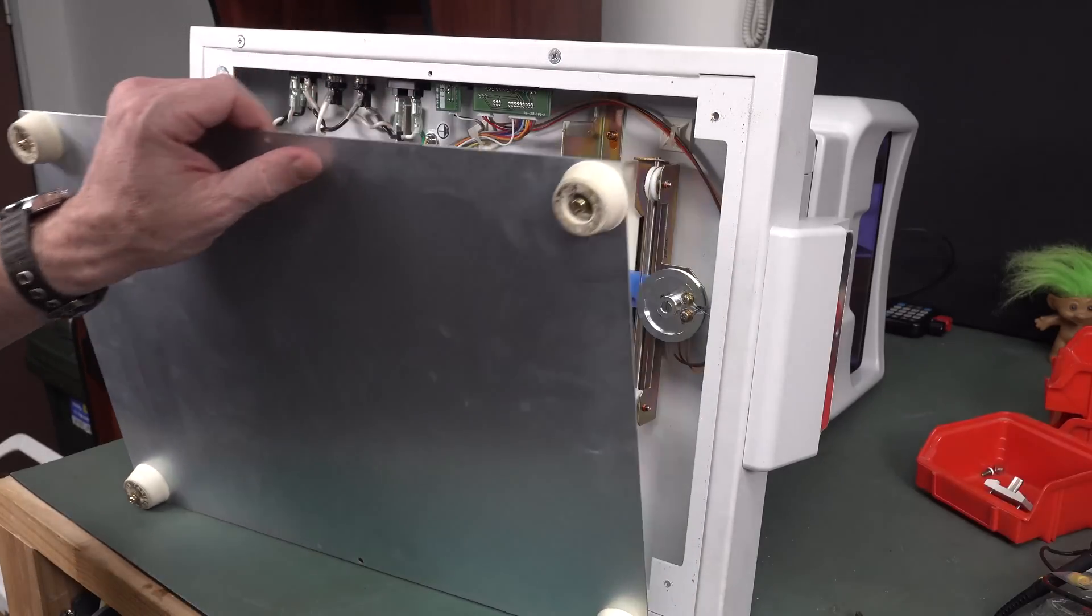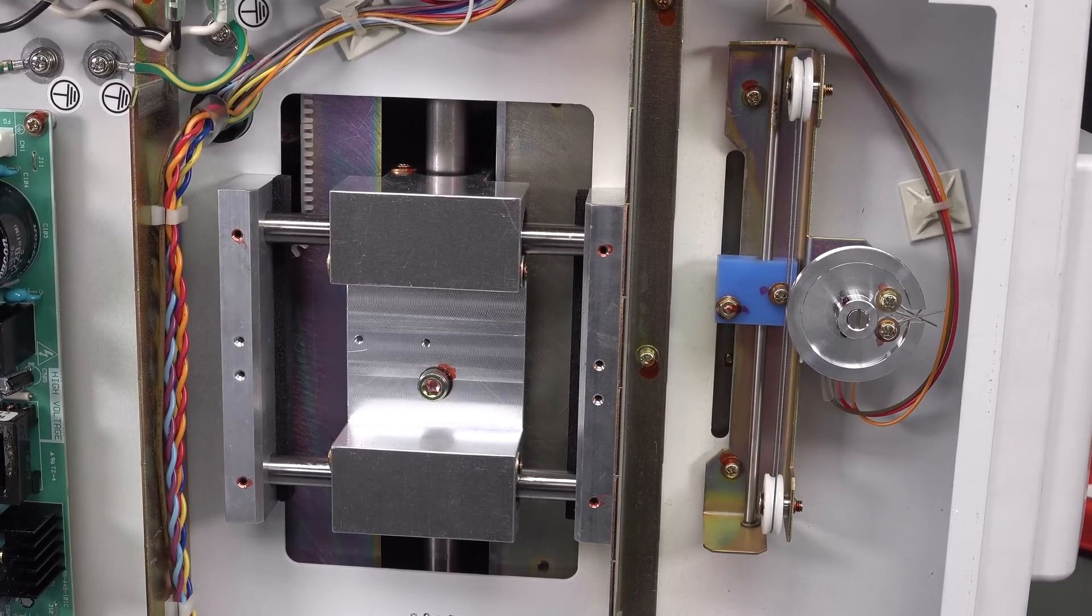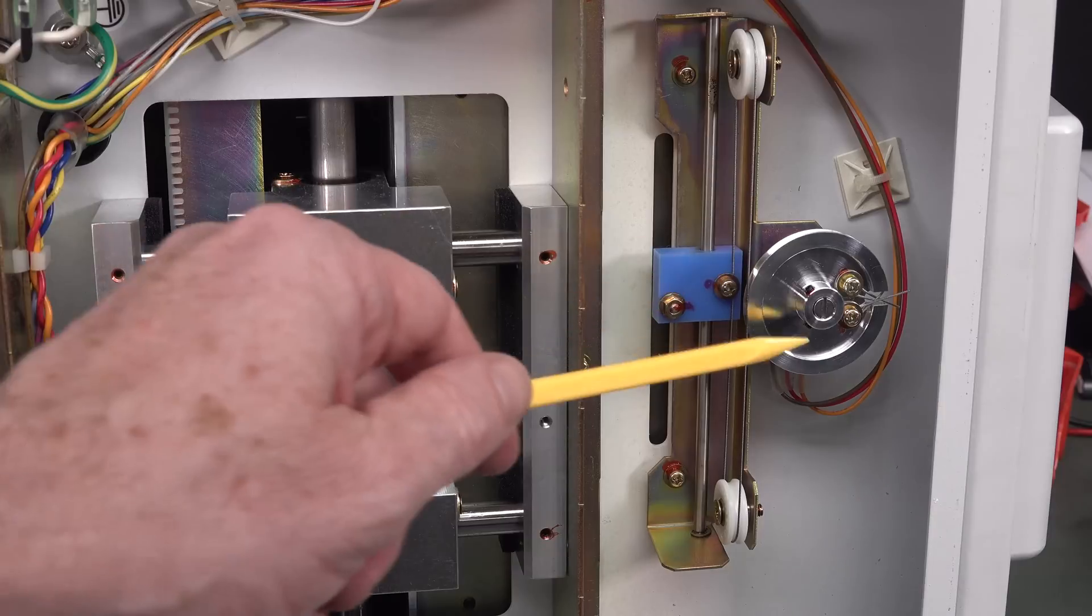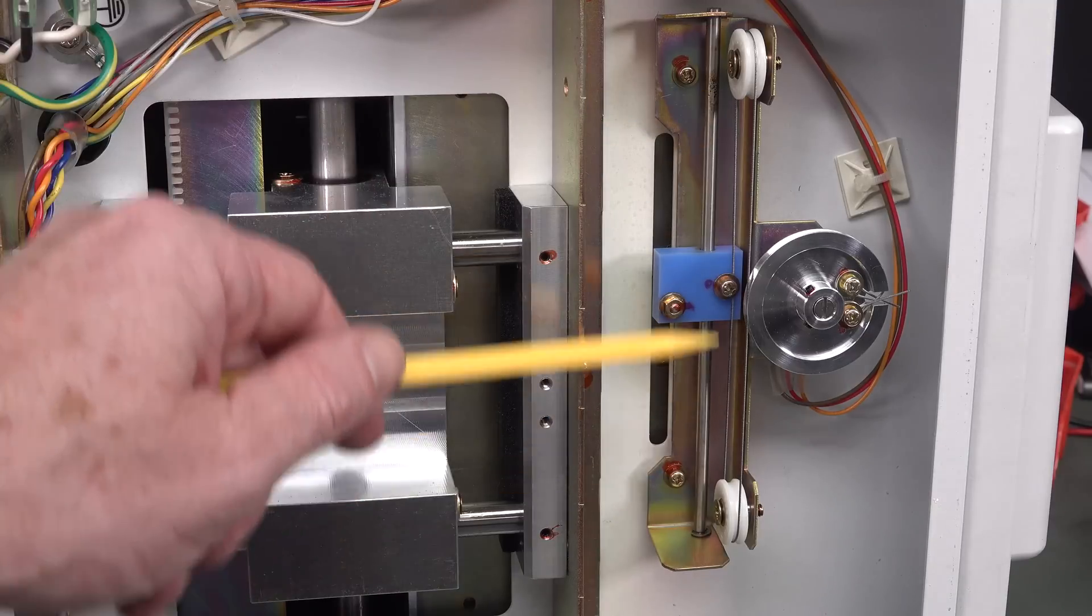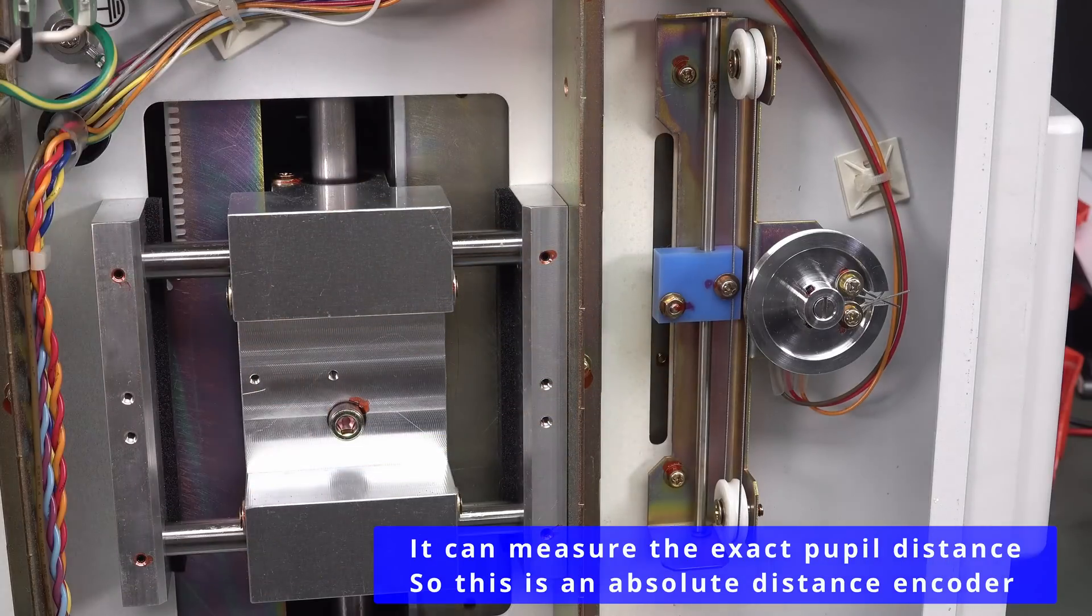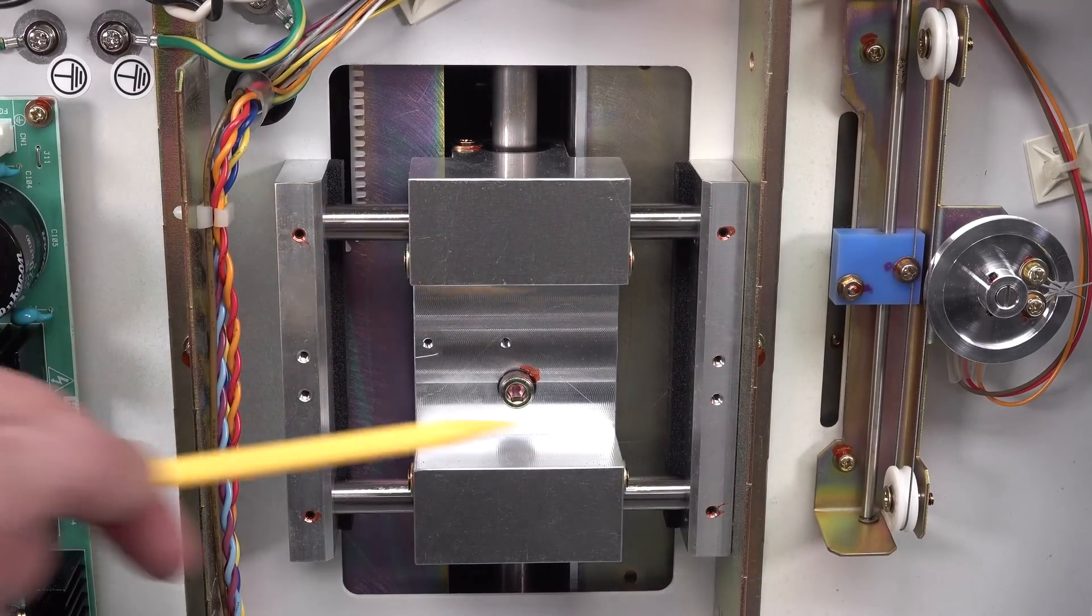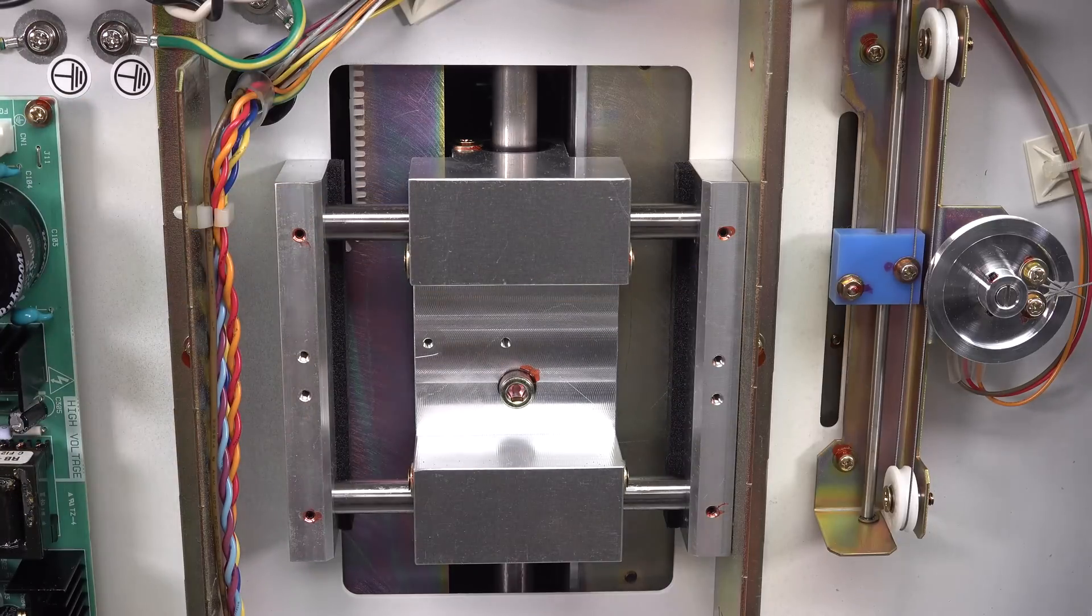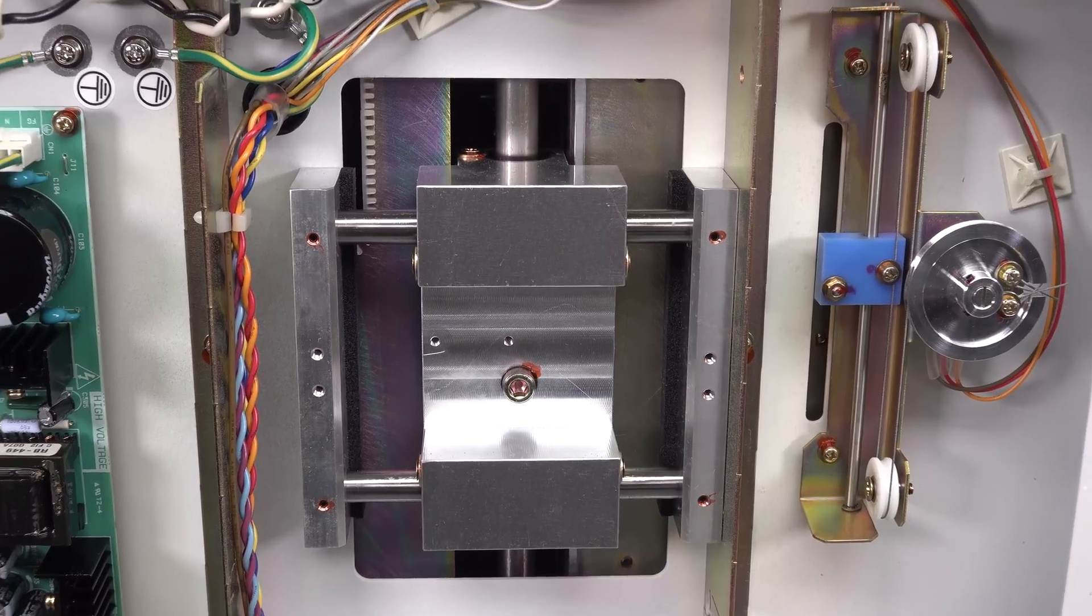Let's get this off. And, oh, look at that. Oh, behold the Wonka-mobile. A thing of beauty is joy forever. Look at this. This is obviously how they detect. There's an encoder wheel here. They obviously detect where it is, left or right. That seems very complex just to measure left or right. Maybe they are actually measuring the distance there, perhaps? Yeah, that's really something, isn't it? And look at these linear bearings here for in and out. Well, this is your XY axis here and this is your Z axis in and out, I guess you could call it with reference to the operator. So yeah, that's just beautiful.